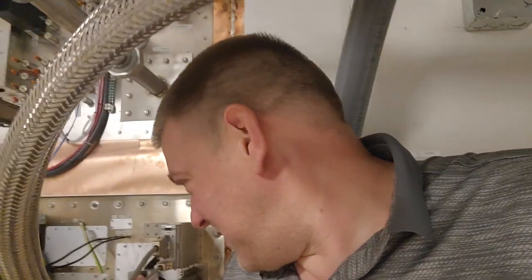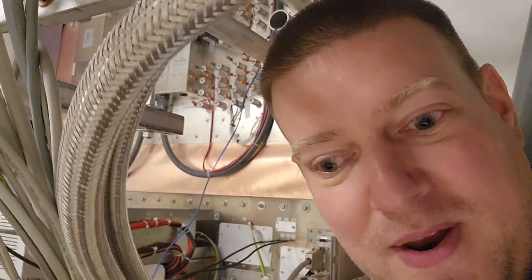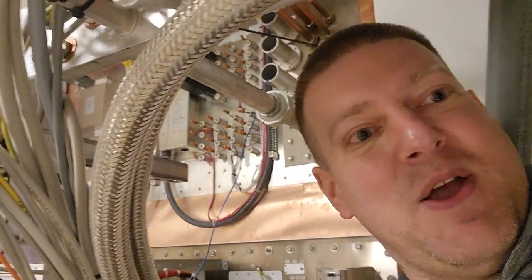It's an interesting system — I'll do a video on it in the future. It's interesting whenever you're doing anything around MRI because it's difficult to get a video recorder inside the suite. We are in the mechanical room and that loud whooshing sound you hear over there — that's the cold head. Over here you can hear what should be some fiber converters; I believe they're really high-pressure fans like you find in a server, and they're over here in these cabinets to my right. My job is to hold this component while somebody threads it from the other side and secures it tightly.